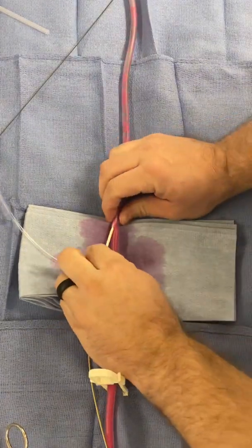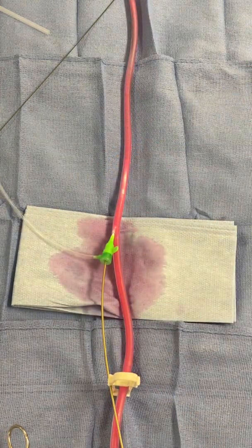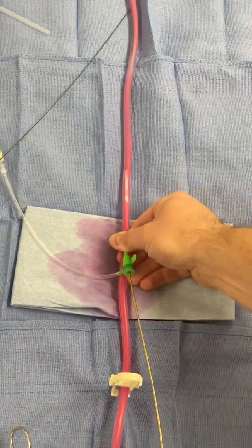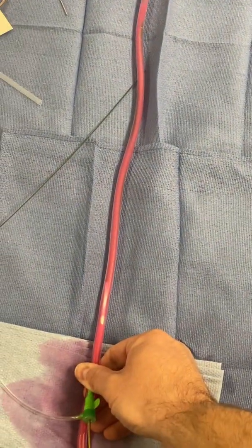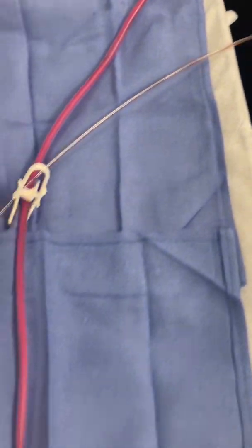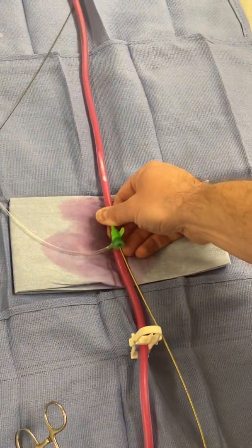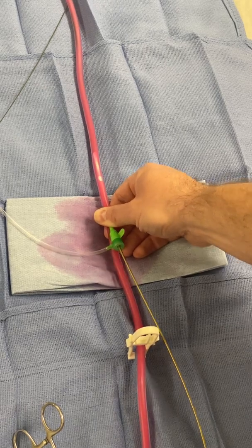You can actually see it will start to run. There's an air bubble from my sheath, but you can see it is now running all the way. My vessel is flowing — going into the trash can because I didn't want to make a mess. Hopefully this helps explain at least how to prep it, prime it, hold down the pedal. The passes have time limits — they won't stay on the pedal for too long.